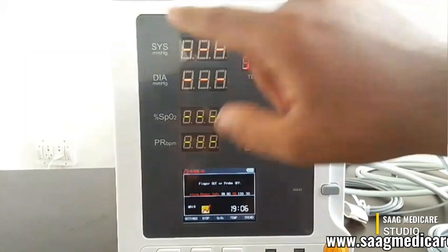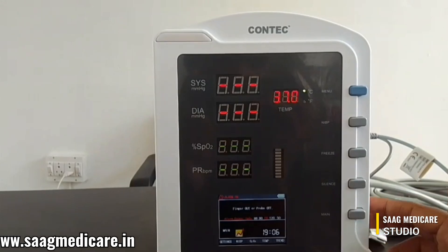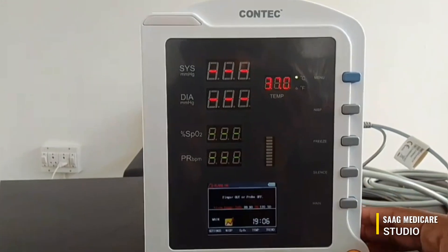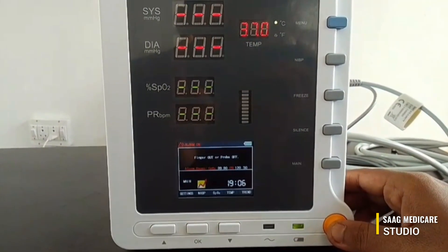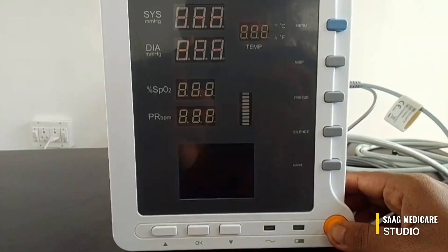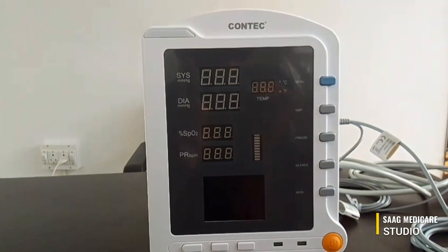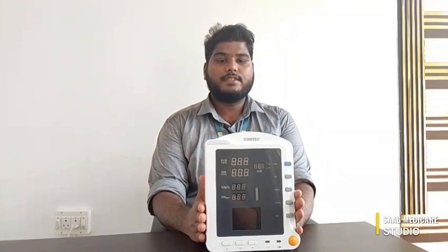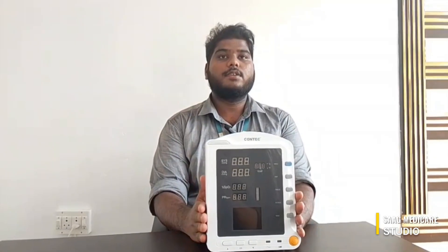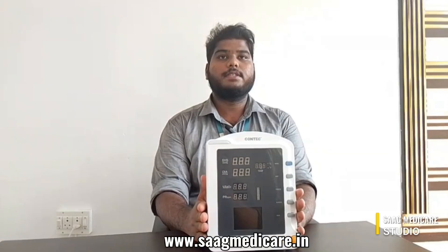Here you can see the alarm indicator. To power off the device just press the power button. As you can see the device is now powered off. This is how the basic settings and connections work for the Contec CMS-5100 patient monitor.